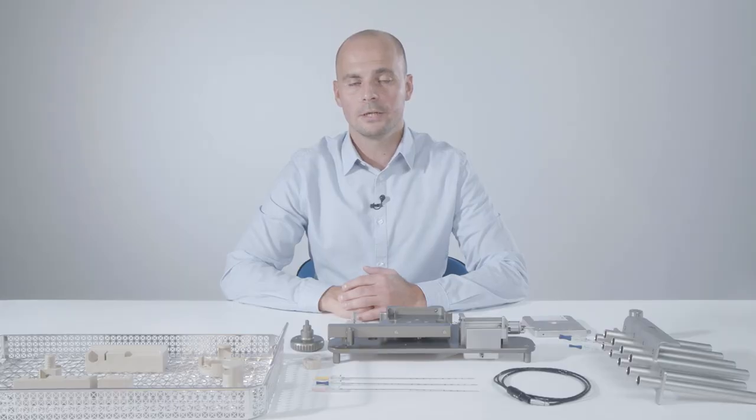I would like to start by introducing the equipment and demonstrating the loading of the sterilization cassette required for the cleaning process.